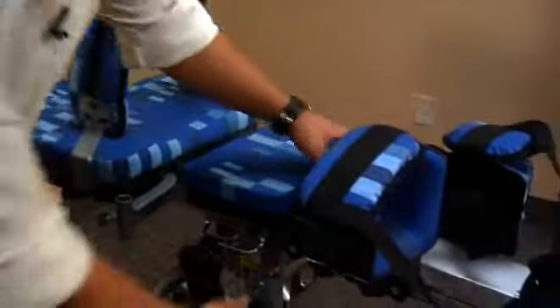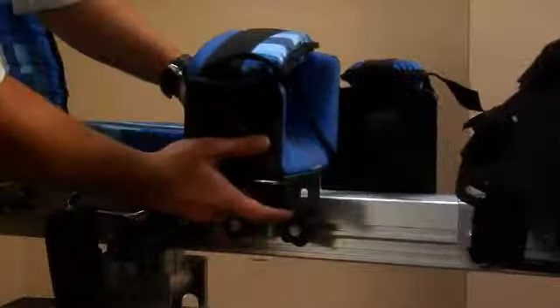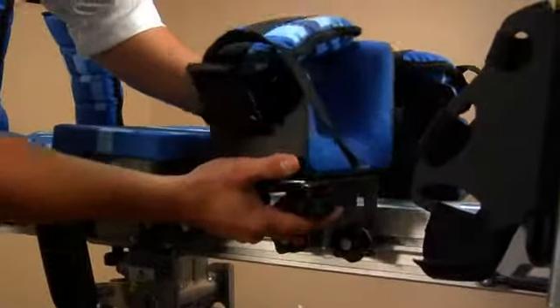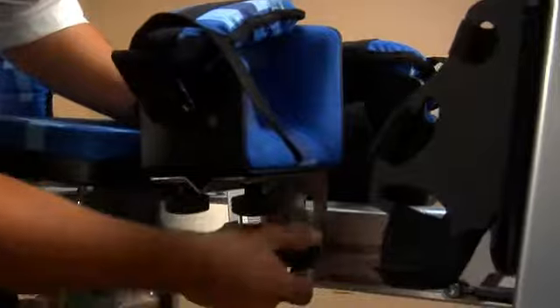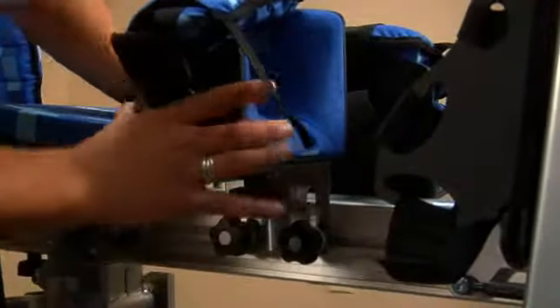The knee cups are easily adjusted via knobs, so you've got the ability to height adjust, and also rotational element to it as well.